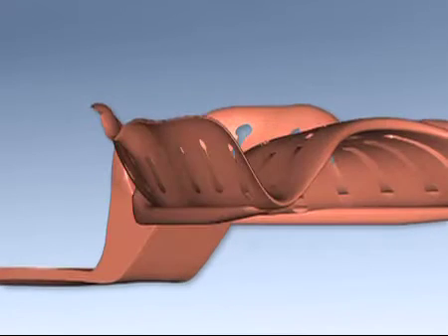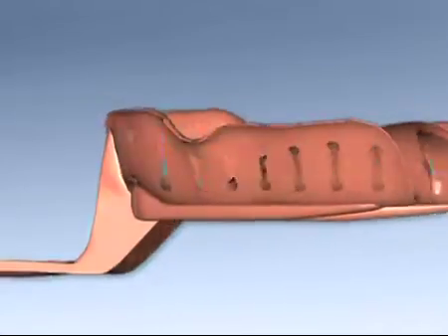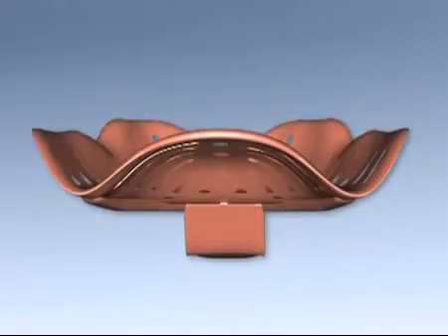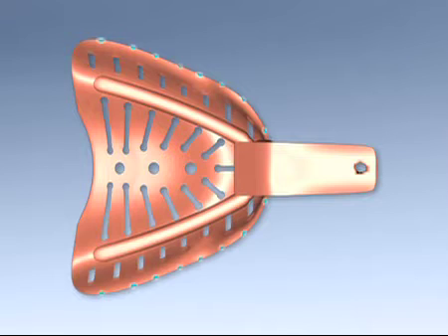The retention slots utilized throughout the tray are engineered to make adhesive use optional. Note how the tray's vestibular border also has retention grooves.